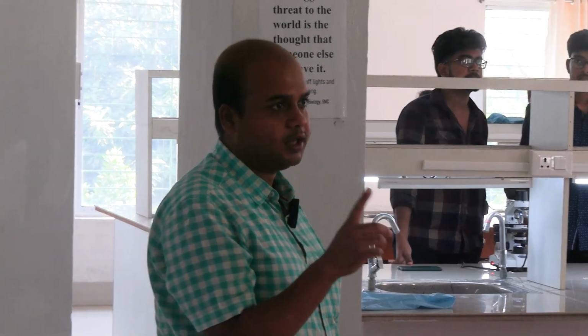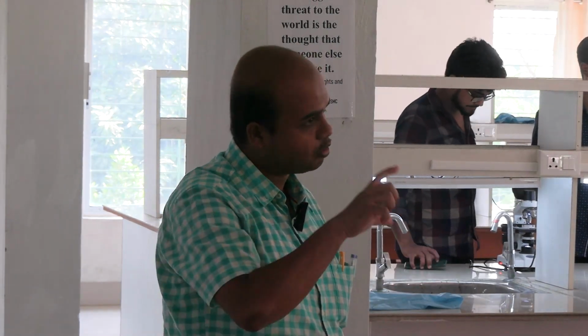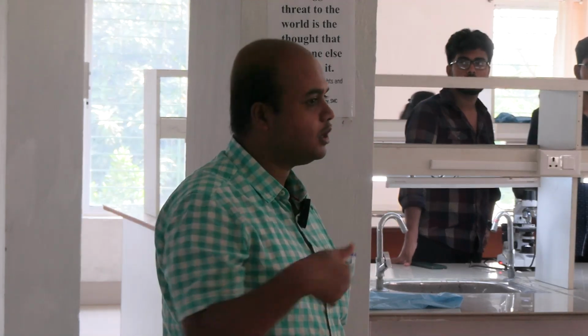So the topic for this hematology practical is differential leukocyte count. From the examination point of view, that is the topic. In that examination you won't be asked to just do a smear, that is not your work. The topic will be differential leukocyte count, and the approximate time for the hematology session in the exam is 40 to 45 minutes, maybe maximum 5 minutes more. So in this time you have to complete the whole work.